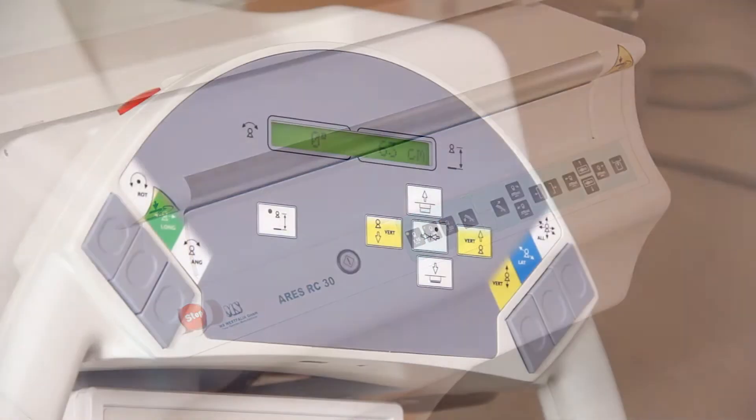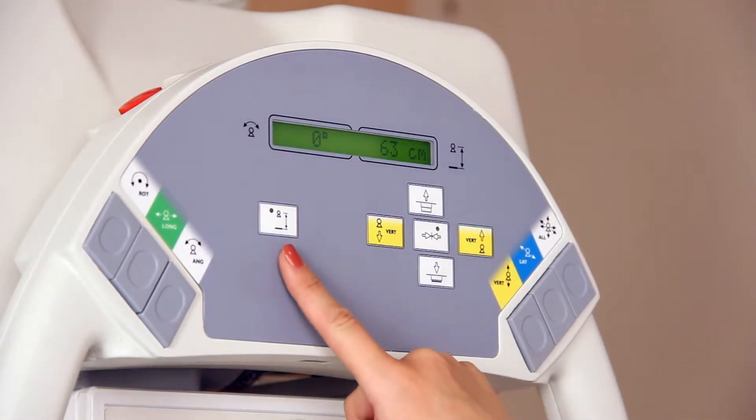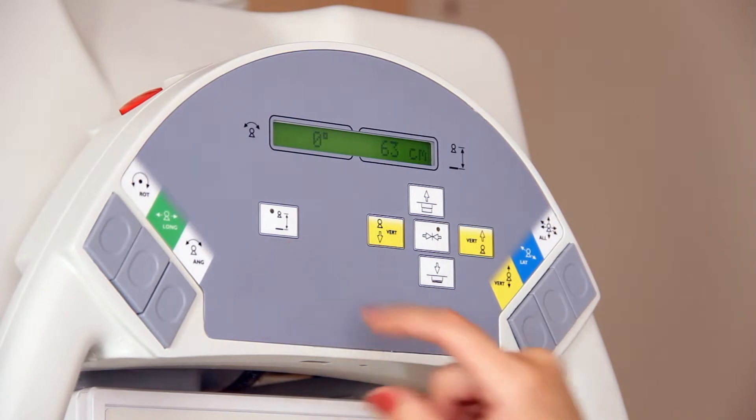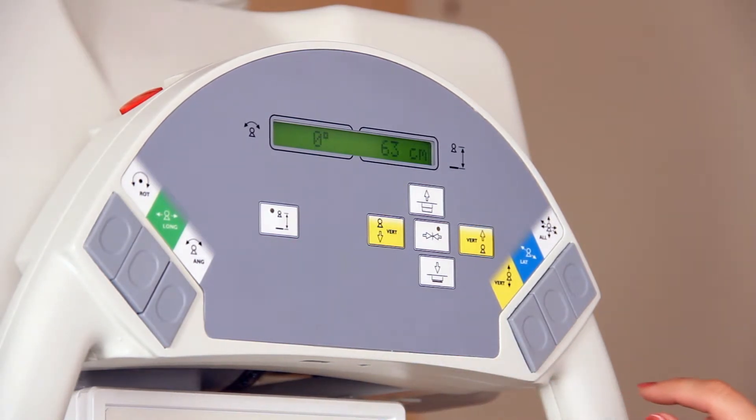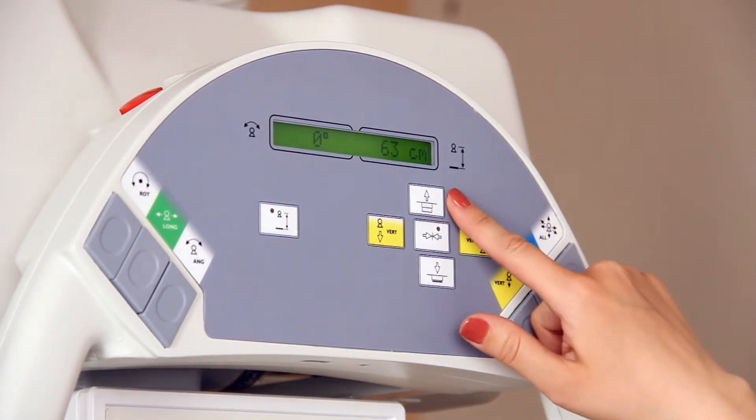Additional X-ray radiator with a ceiling mount included into the basic configuration widens the choice of examination options.